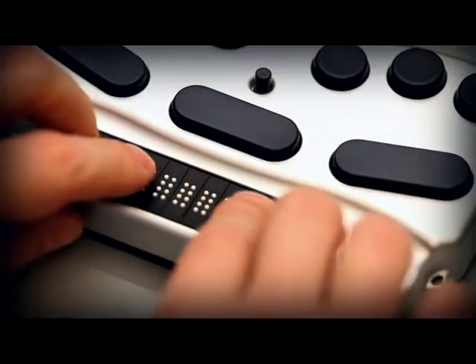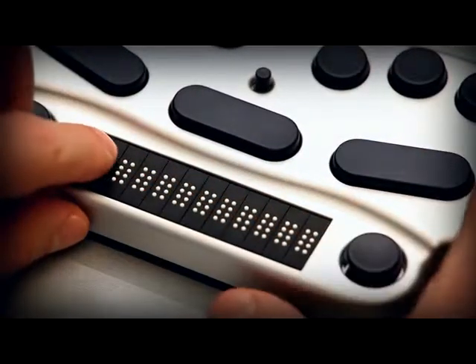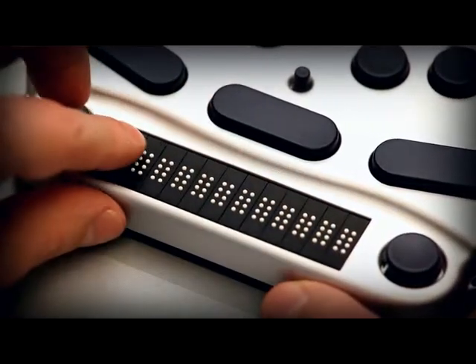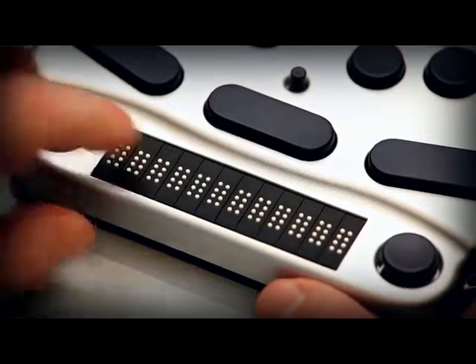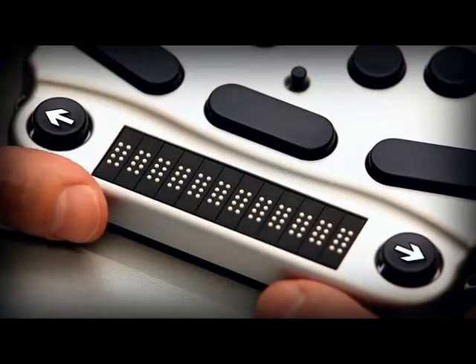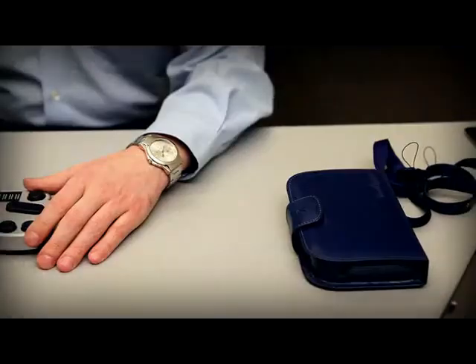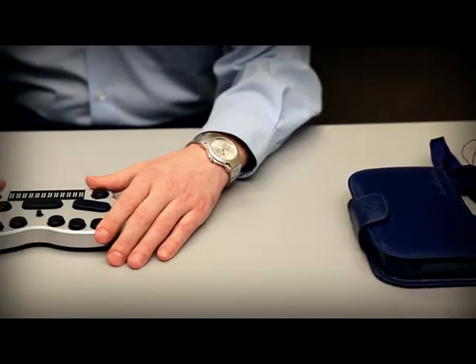Beneath these keys you find the 12 cell Braille display. On either side of the Braille cells are two round keys. These are left pan and right pan and they're used to move the displayed Braille to the next or previous 12 characters.